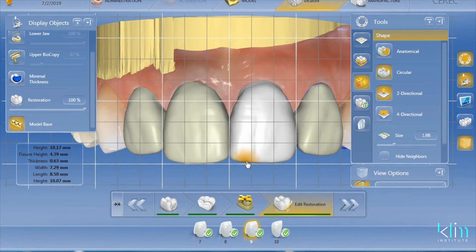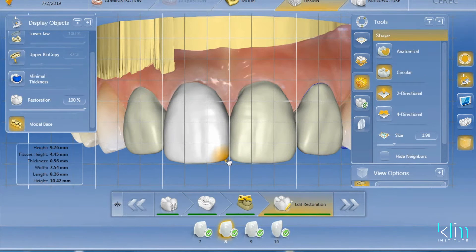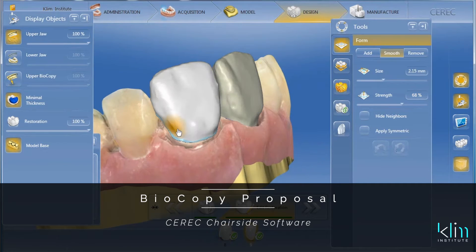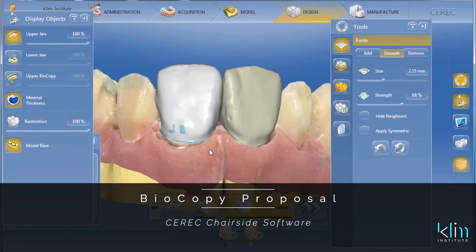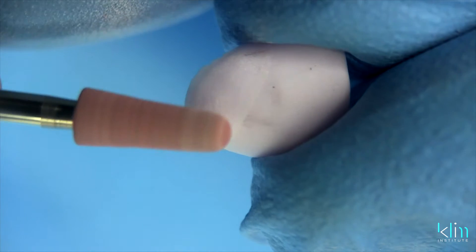I can design quicker, I get a cleaner mill, so I have less adjusting and shaping to do afterwards. The biocopy feature in the last few versions of the software — outside of 3.85 — has not been really clean. You'll get the basic shape but the emergence and the line angles aren't clean because you have to do a lot of tool manipulation, particularly cervically. That emergence area is usually under-emerged, so you end up with a lot more design work and more shaping to do to make it look clean.